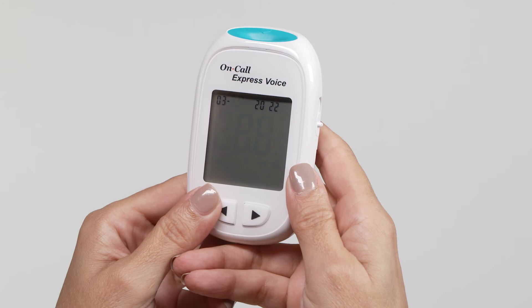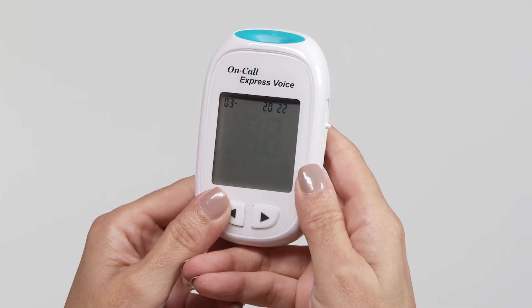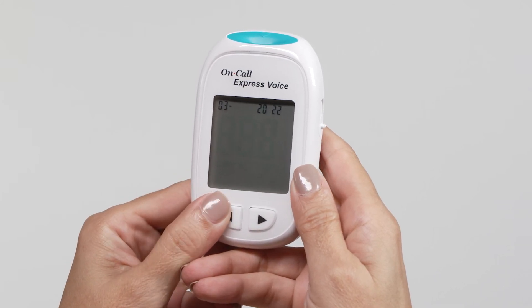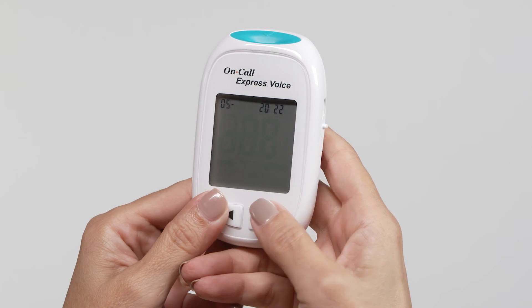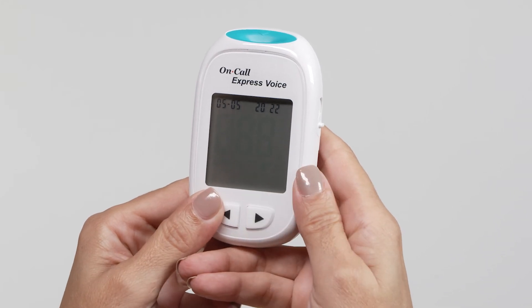After setting the year, the month will appear at the top left of the display. Press the left button to increase the month, and then press the right button to save your choice and start setting the date.